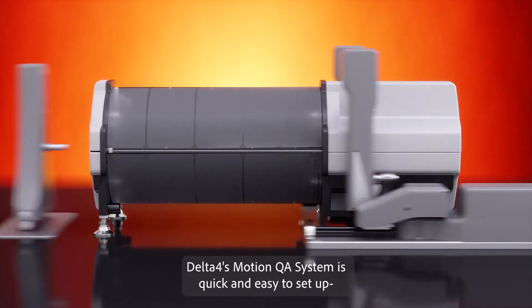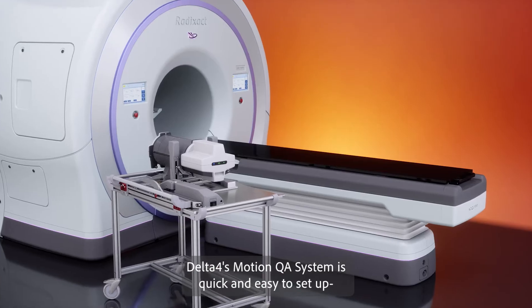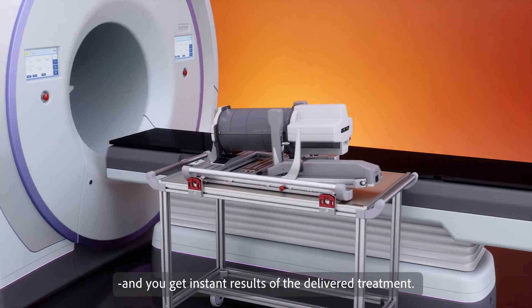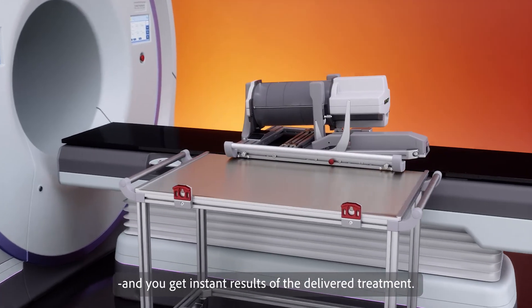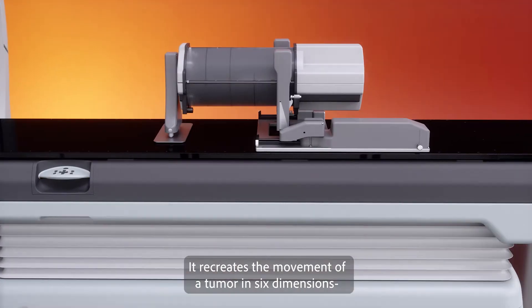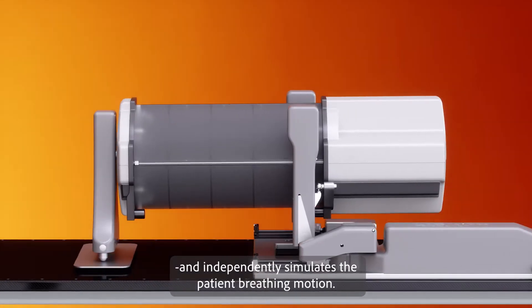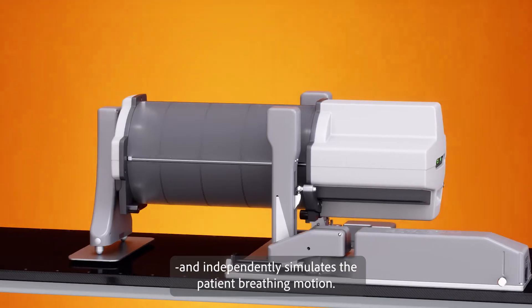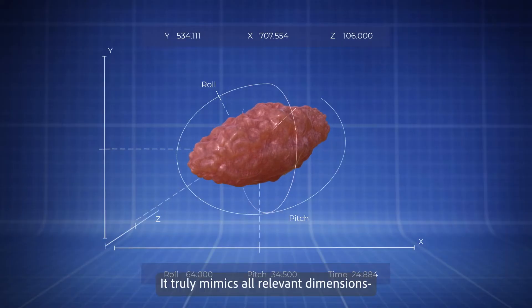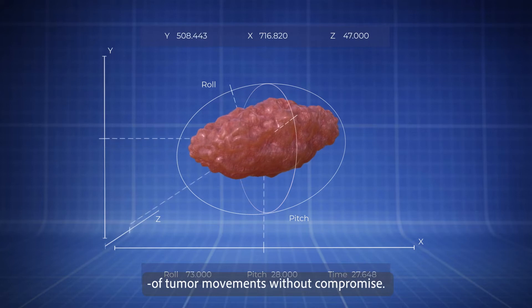Delta 4's motion QA system is quick and easy to set up, and you get instant results of the delivered treatment. It recreates the movement of a tumor in six dimensions and independently simulates the patient's breathing motion. It truly mimics all relevant dimensions of tumor movements without compromise.